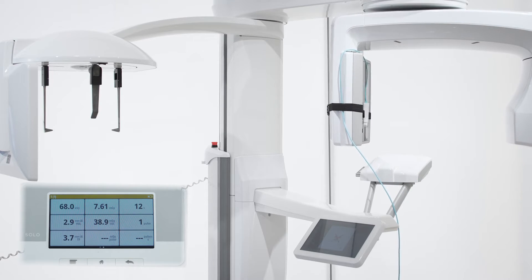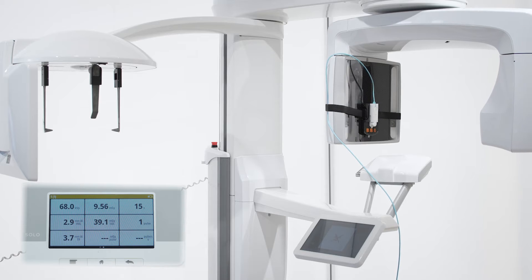From this exposure, we get a higher dose value and the dose rate looks stable for the whole rotation.